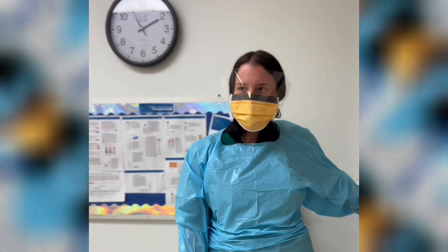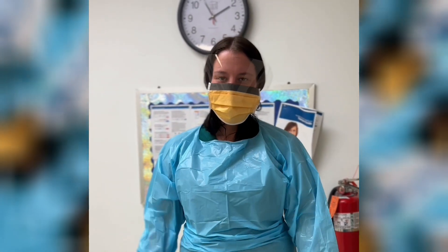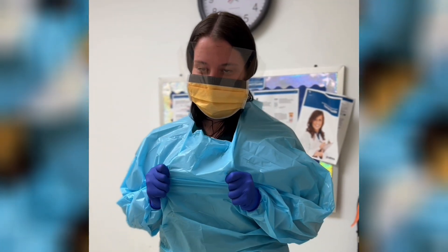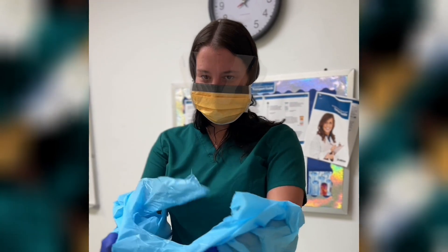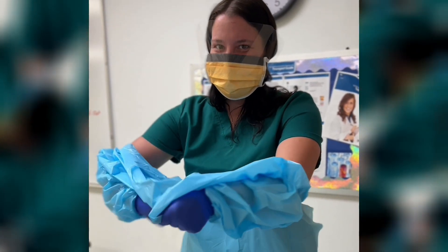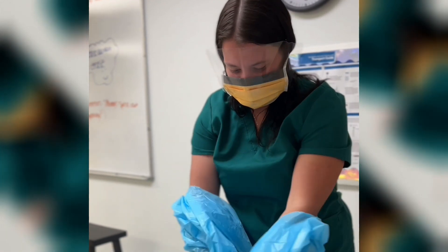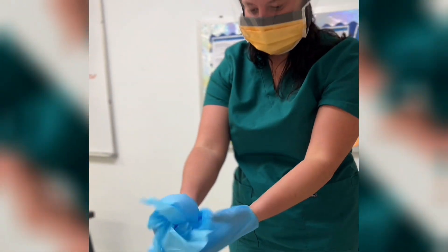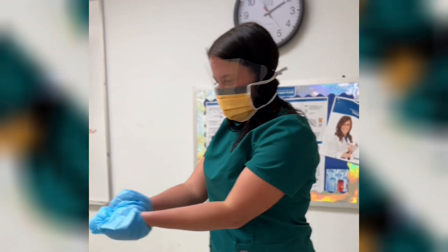After you're finished doing whatever you need to do in your patient's room, you need to know how to take off your PPE properly. The first thing you're going to do is grab your chest area and pull the gown away from you, then roll it down so you don't get any contamination on you. Just kind of ball it up.